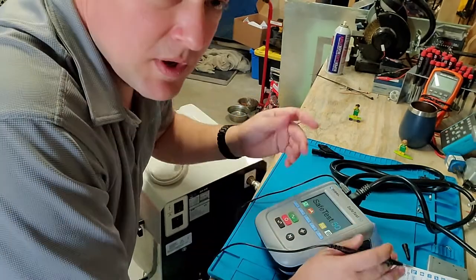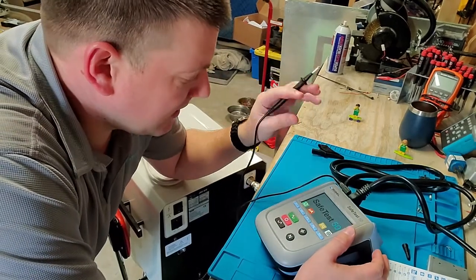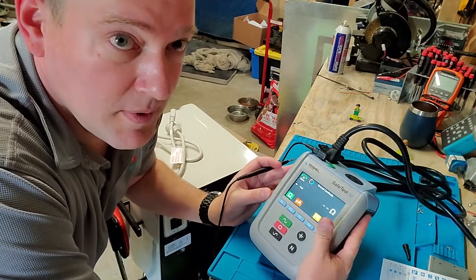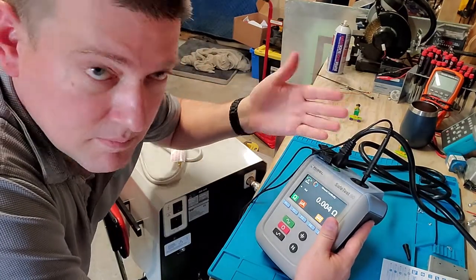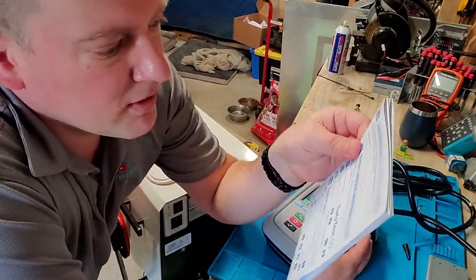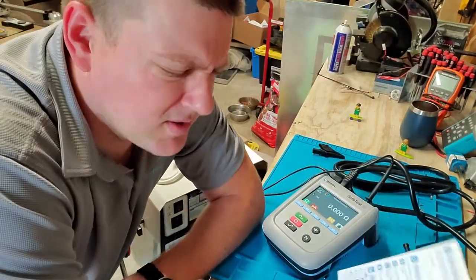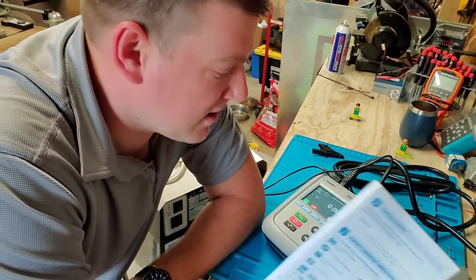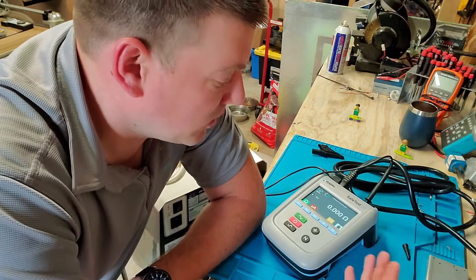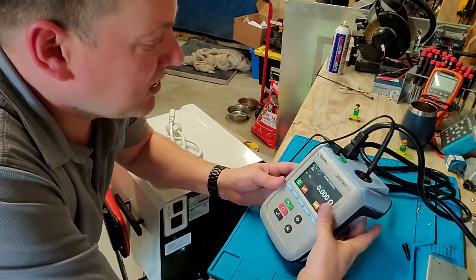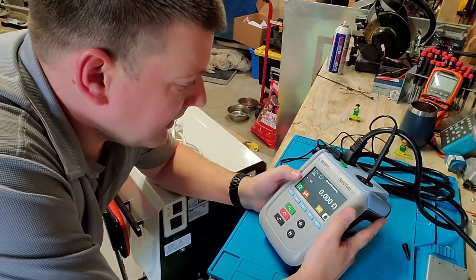Let's separate this guy first, because the first thing that you always have to do with your electrical safety analyzer is the ground test and to check the integrity of your cable. The first thing I'm going to do is press Ground and I'm going to zero the probe. I briefly looked over this quick start guide, very interesting, very thorough. You can also download the real user manual to your phone or tablet, but I'm going to see how intuitive this is.